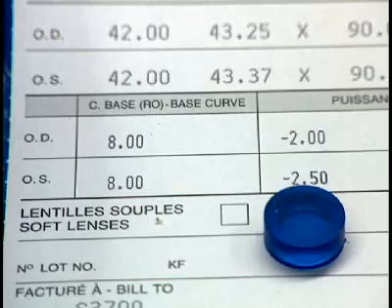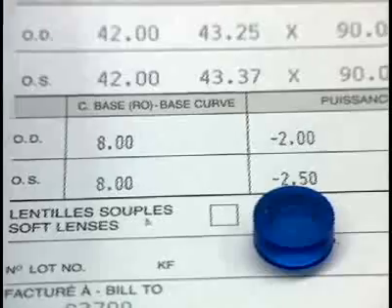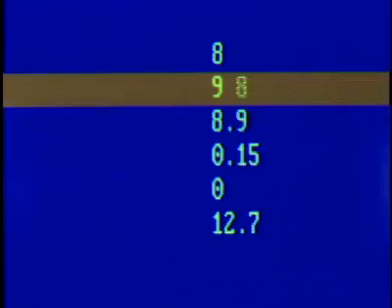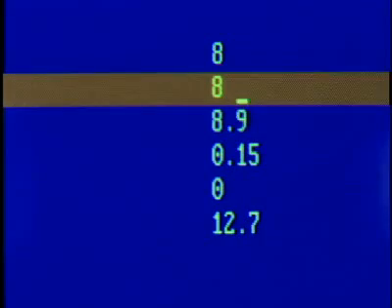These small PHEMA discs are used to make soft polymer contact lenses in a variety of colors. We see here a patient's prescription, essential to the fabrication of lenses.